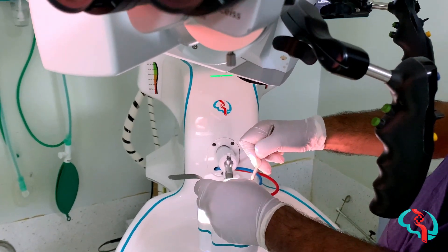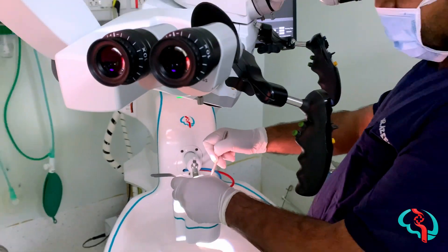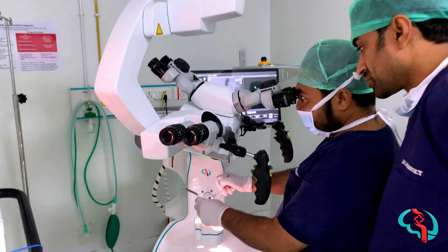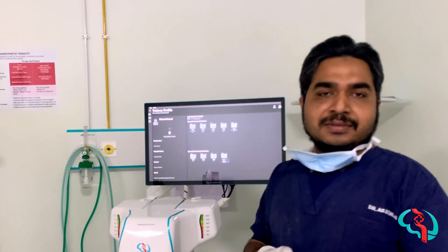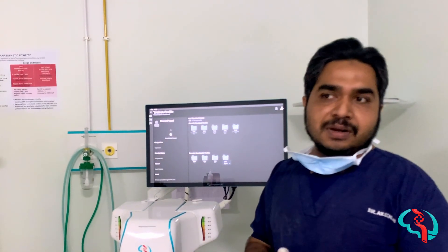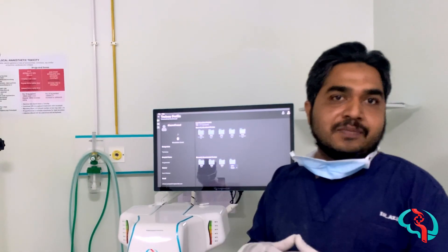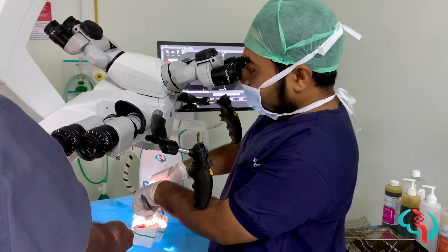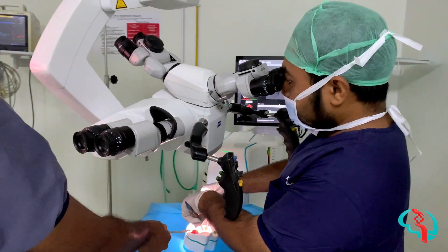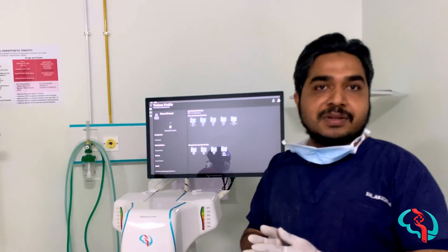When you think of cadavers, they are not available everywhere, and even when you do use them, the muscles will be shriveled and preserved only. But here, the material replicates the natural thing. Since the aneurysm is pulsating — the dome is pulsating — it will be a better option than a cadaver and more comfortable than a cadaver environment.